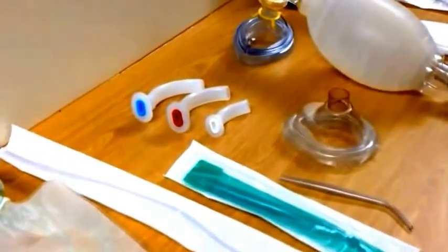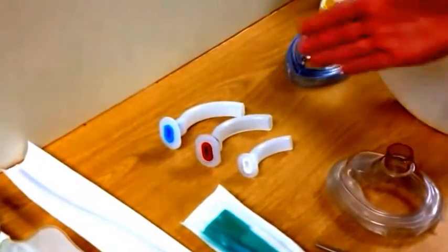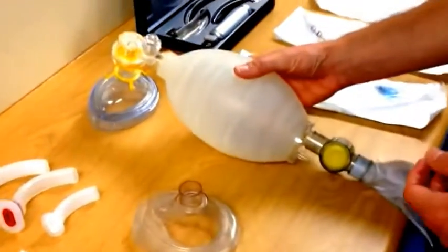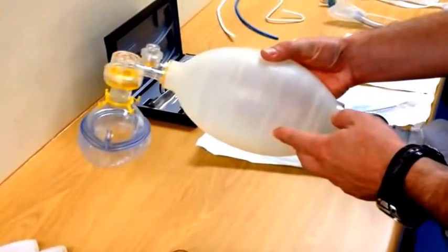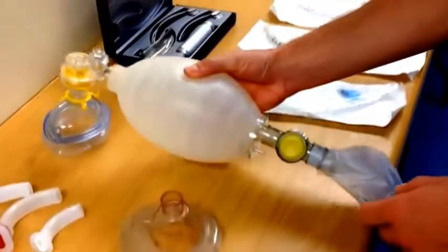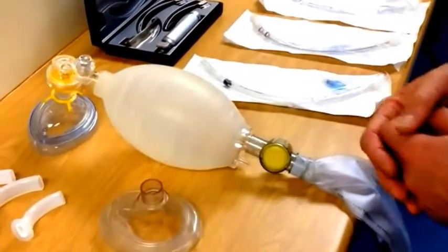You should have a selection of airway assist devices such as oropharyngeal airways, and you should have a ventilation device — in this case a self-inflating bag valve mask ventilation device with a selection of mask sizes. Your equipment should be checked and ready to use.